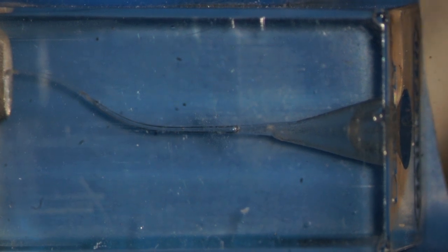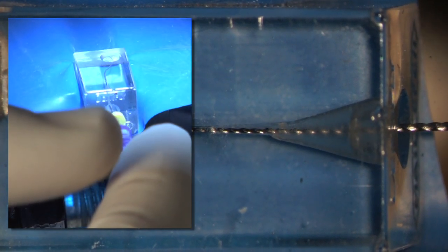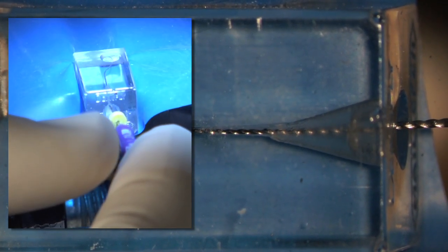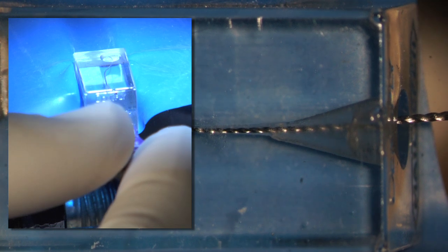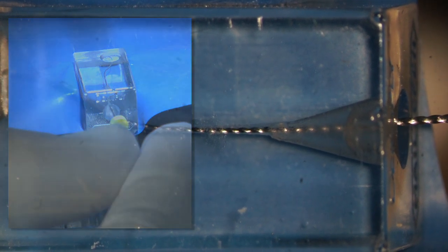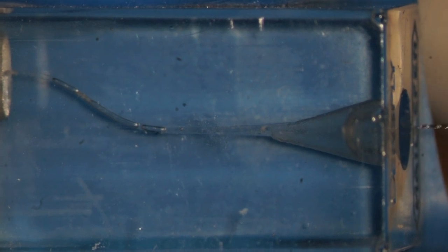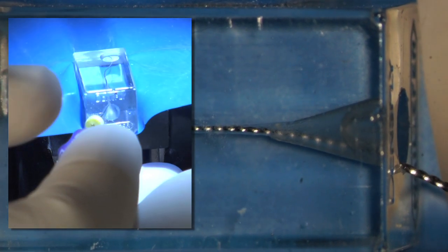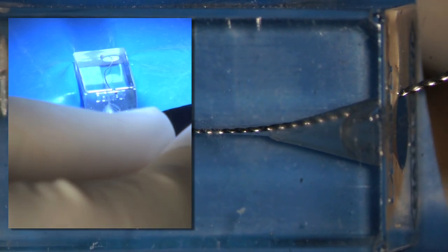Notice if I take a ten file, the ten file demonstrates that when I come in here, the handle's standing up straight and tall. In other words, we not only have coronal axis, but I'm emphasizing we have radicular axis. If we didn't have radicular axis, as an example, if the handle was off axis, which is normal in furcated teeth, then we would probably use something like the SX.